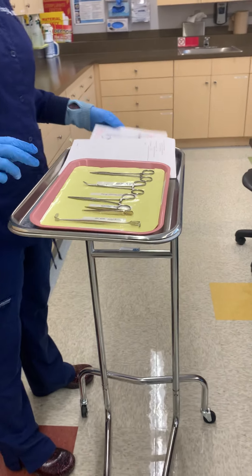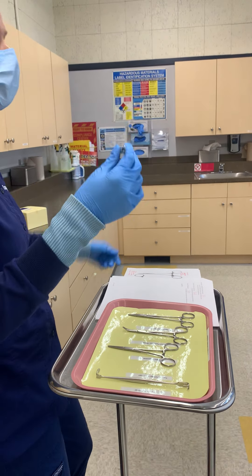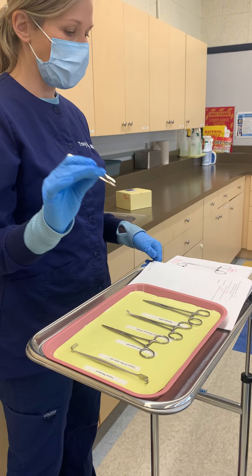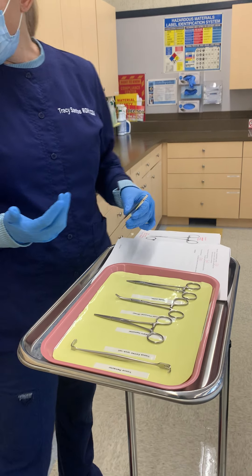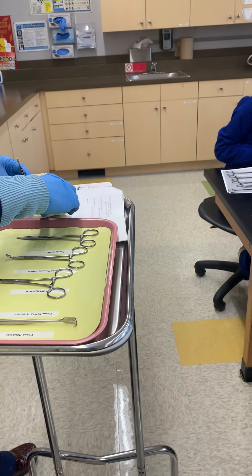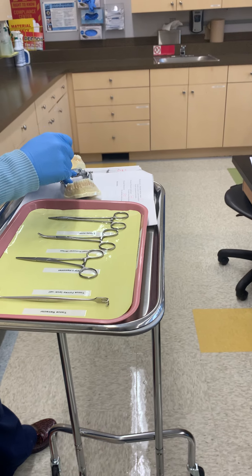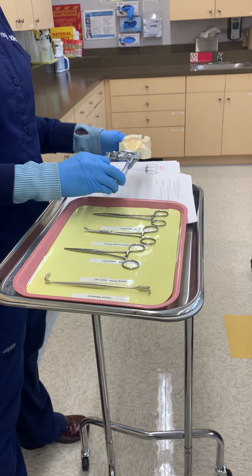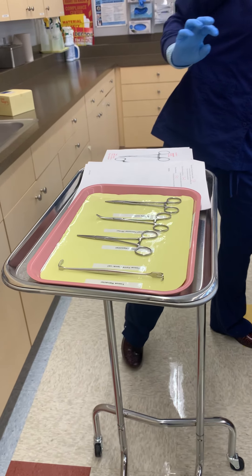Next up, tissue forceps kind of look like a tweezer — they're also known as pickups. This is going to hold tissue during the surgical procedure. The clinician would be working, and if there was something they wanted to pull away, they might hold the tissue forceps and use some other instrument. It gives a little more vision or keeps tissue out of the way in case it could be damaged.